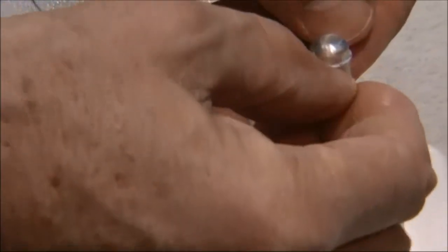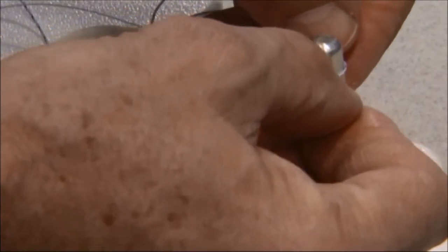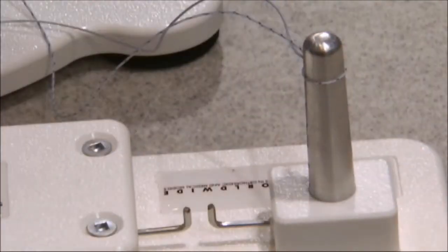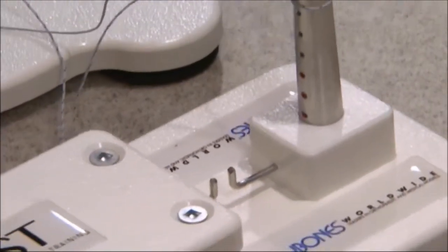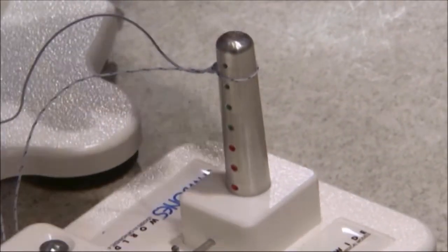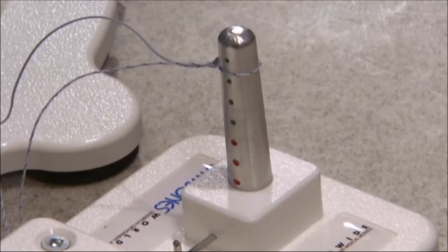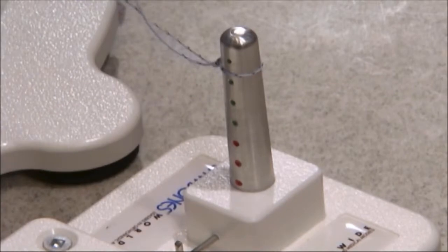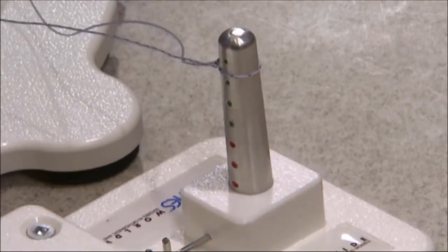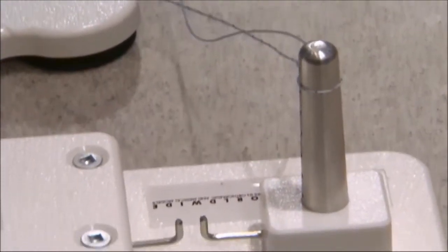Slide it back onto this conical-shaped mandrel, slide it down, and you can see as we zoom in that that loop has displaced only about a half a millimeter. And that's acceptable. We think that about three millimeters or more is unacceptable. So this would be an example of using the knot tester with a solid knot.